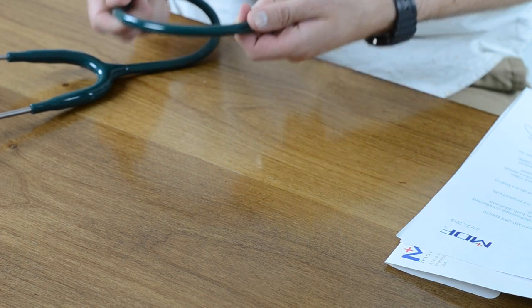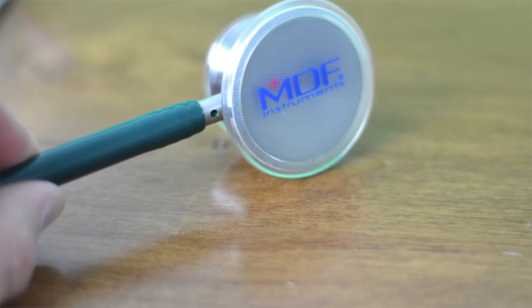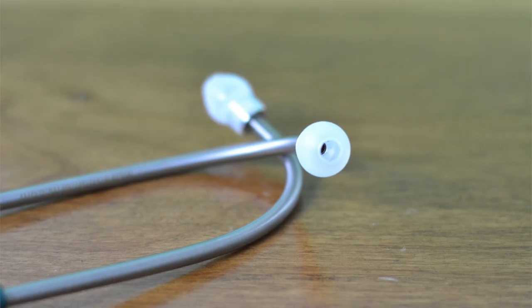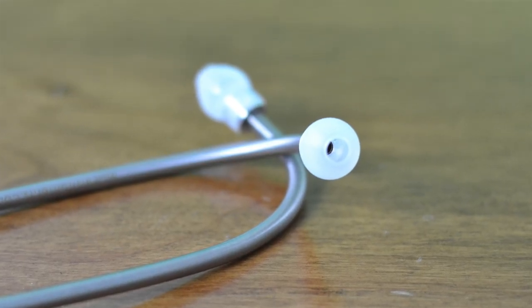The tubing is actually designed to be thicker for greater sound insulation and it's longer for greater reach. And the clear pieces that you see on the stethoscope are intentionally designed so that you can see when it's time for a good cleaning or replacement — all the grime that builds up underneath or any cracking. Overall, it feels like a very quality instrument and it's lightweight.